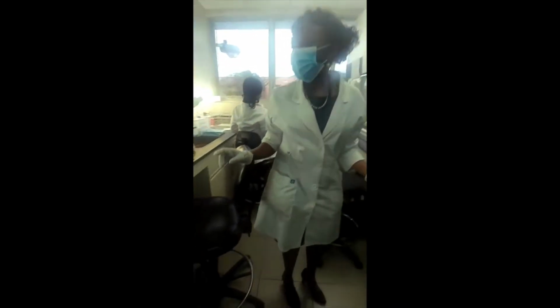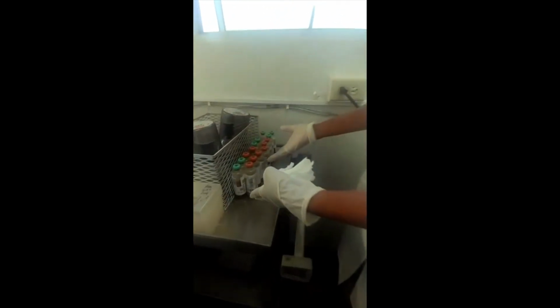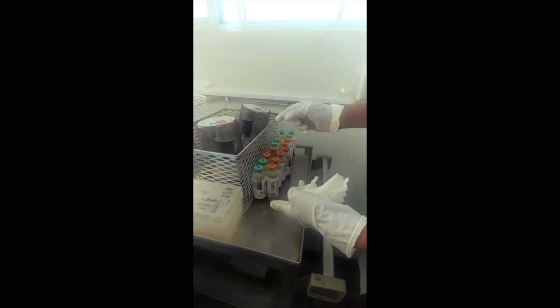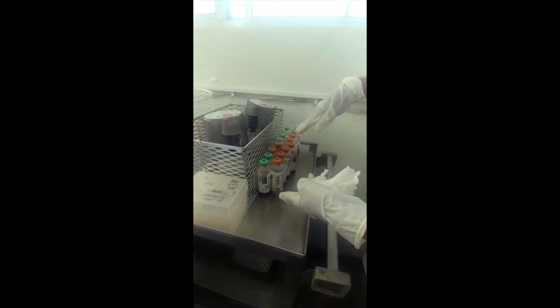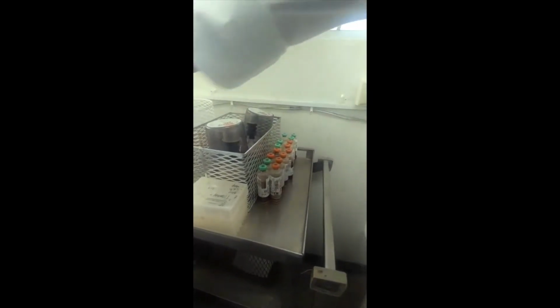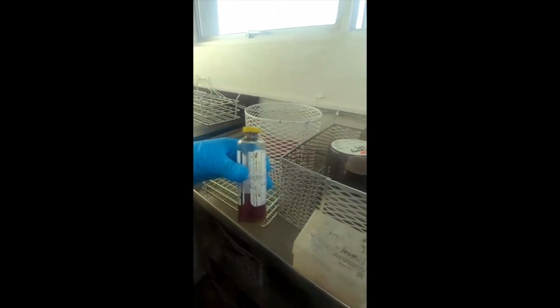All right, so what do the blood culture bottles look like, Miss? Okay, can I open this down? No, there are some bottles. Okay, so here are some bottles. These are what they look like. This is one set, color coded. One is aerobic, one is anaerobic. I can't remember which is which right now, but we will teach you that later on. And for pediatrics, we have a special bottle. This yellow one. All right. So this is a pediatric bottle with the yellow.